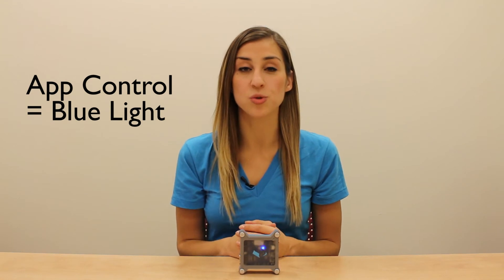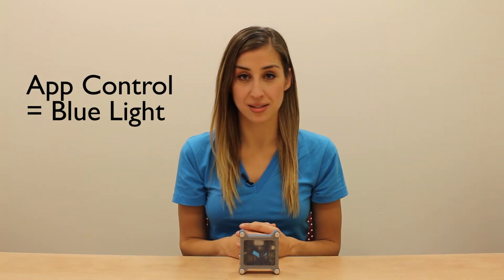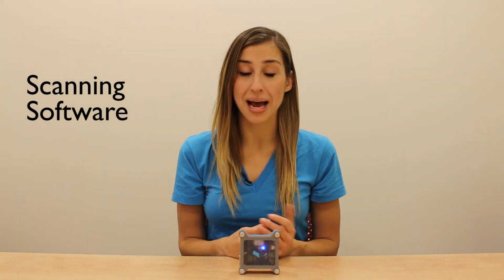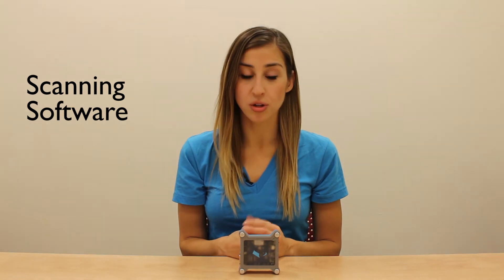The next mode is called app control, identified by the blue light, which is used with your computer or with your iOS devices. This is the mode you'd use in iOS with switch-accessible apps that use space and enter as inputs, or on your computer with scanning software. For example, Macs now have built-in switch control, so this is the mode you'd use for that.